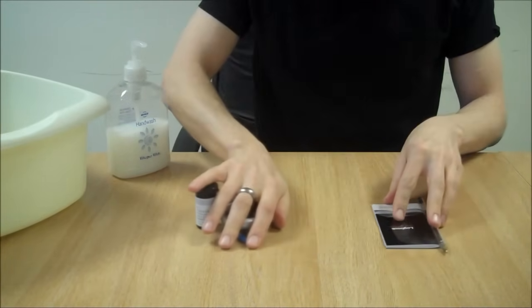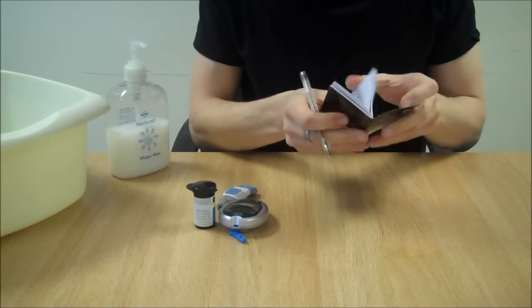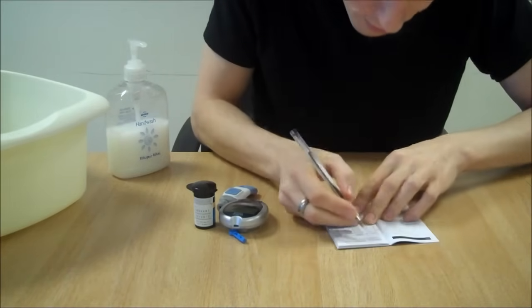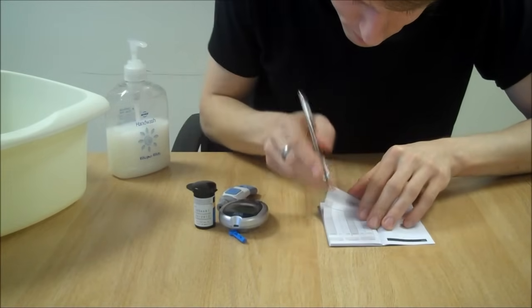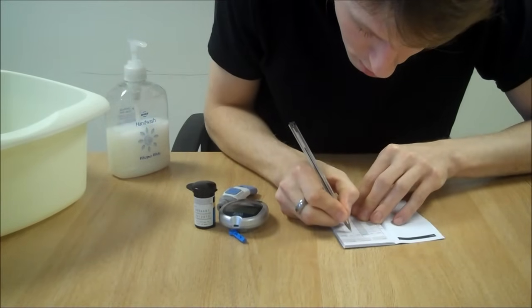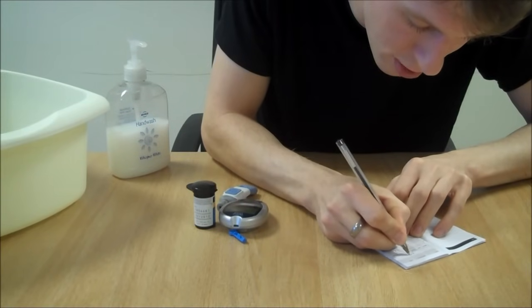Finally, record your results in a blood glucose monitoring diary as I have here. That's 3.6 and that's after lunch.